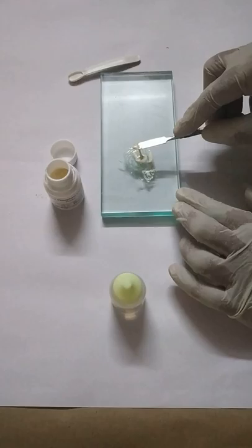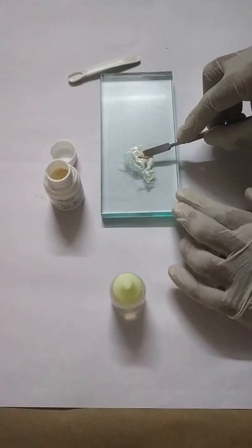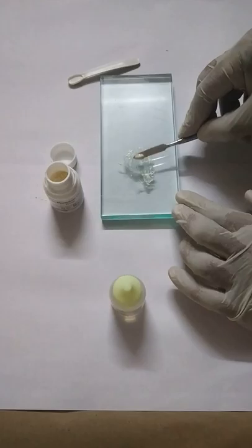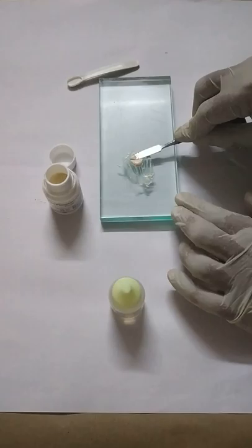Now you can make out that your mix is fine or not by stringing. You see, around 12 to 19 mm it should string upwards. That means your mix is correct like this. If it is stringed more than that, then you have to discard the mix because the mix is too heavy.